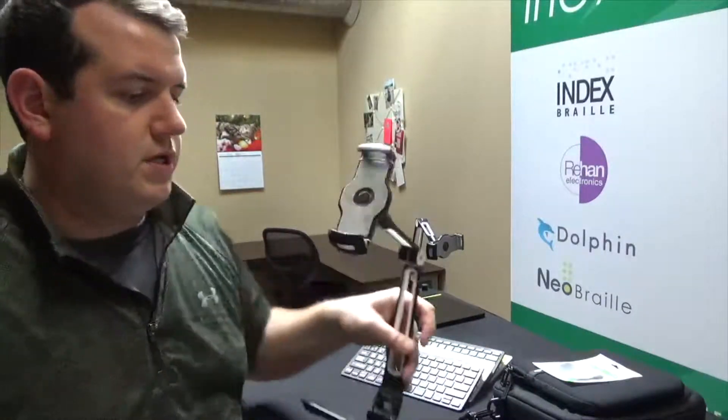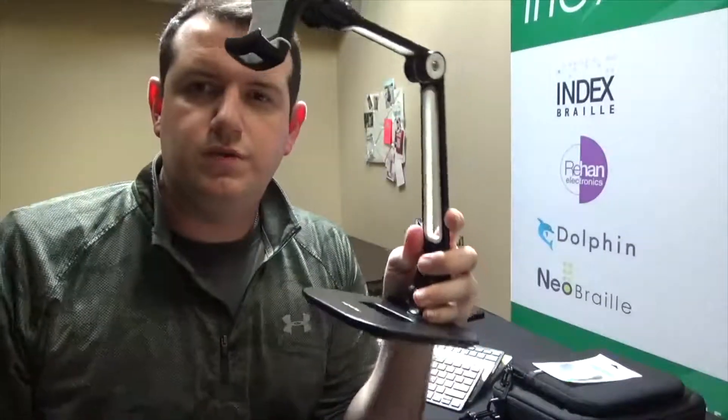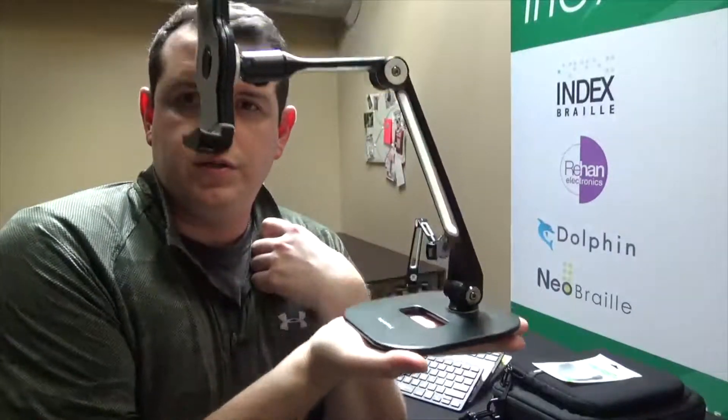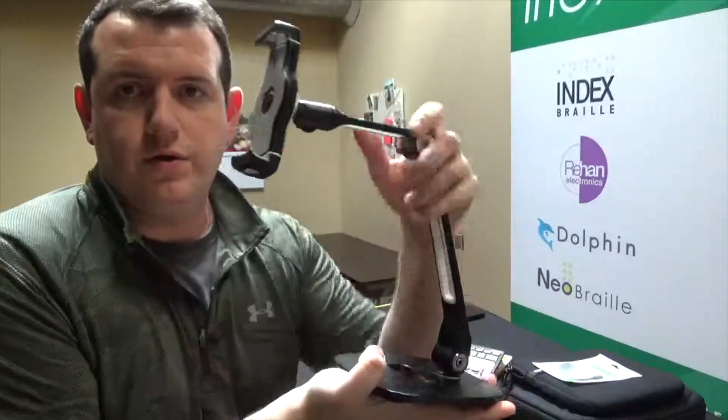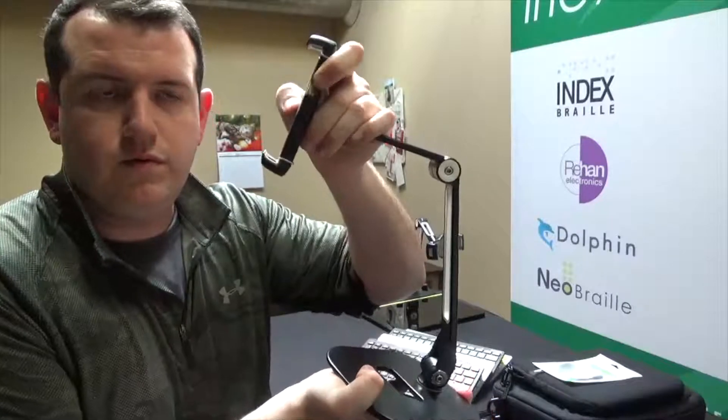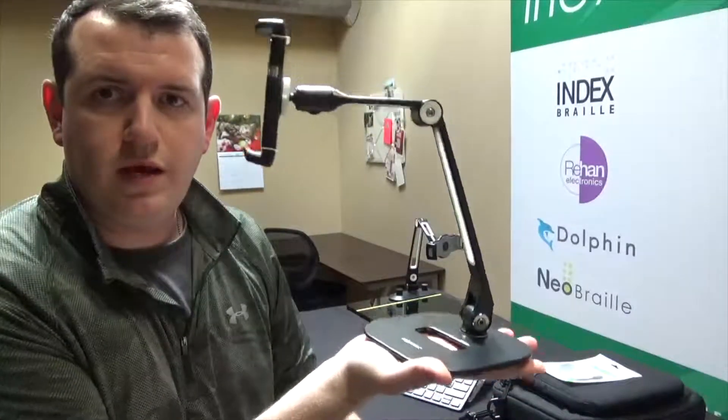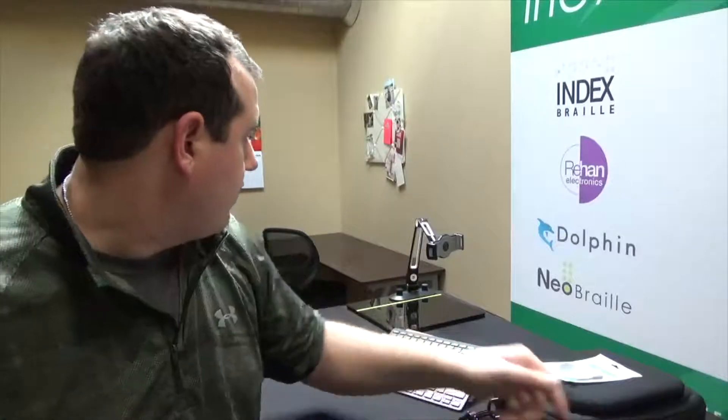And then we have a few versions that are not like stick to or clamp on. This one is just a weighted base one. This one is just another arm. You can pivot it, swivel it, clamp your tablet in there, and that's just a weighted arm version. So that is available as well.